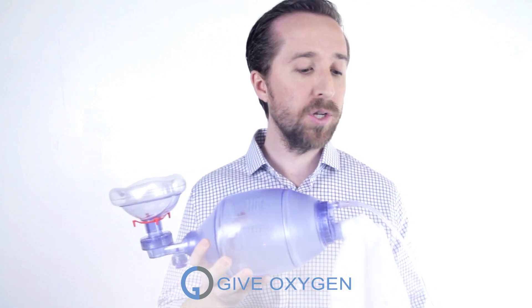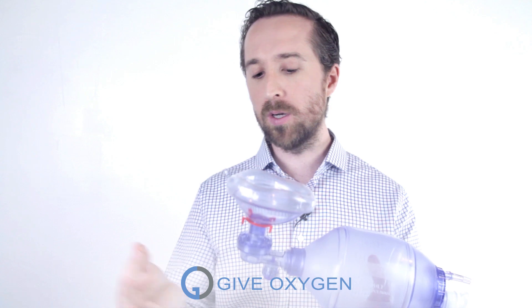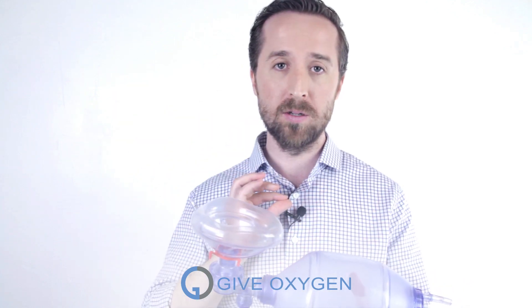If a medical professional could keep a patient alive and breathe for them with this device, think about the open source ventilator idea, which is really just creating a mechanism to squeeze it in lieu of that medical professional. We're leveraging this clean and sterile oxygen line, the ambu bag, and the intubation tube that comes off and goes into the patient's lungs. All we're doing is squeezing it.